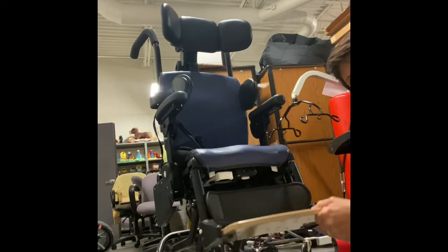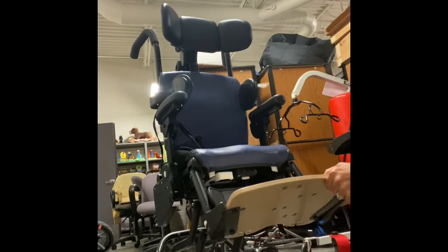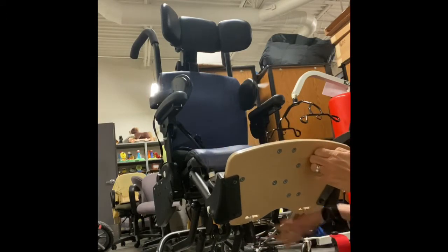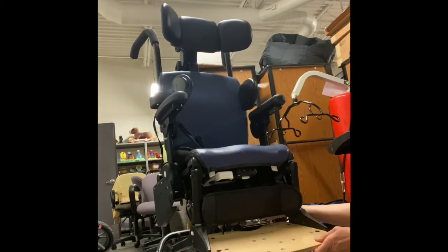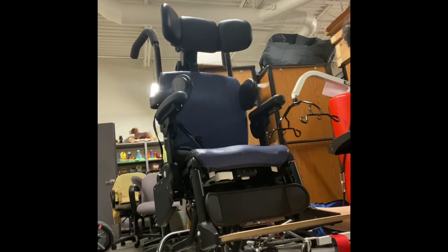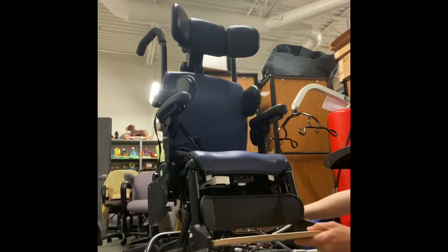Press that white knob and pull forward and down. Sometimes if you pull forward too far, the little silver mechanism comes out — you just have to guide it back in to the bottom. You haven't broken it. Then you bring it to that sweet spot where your student or your child has the easiest time sitting.